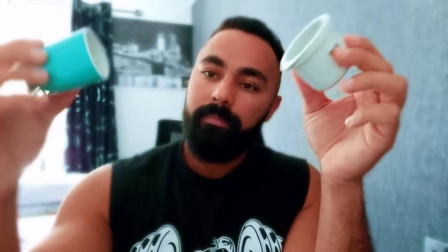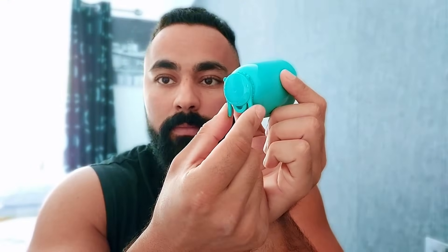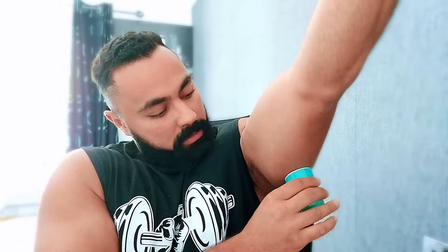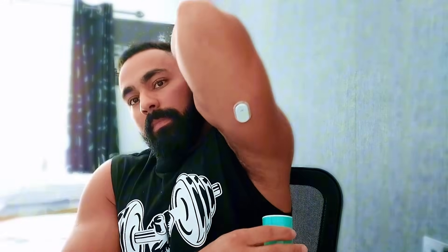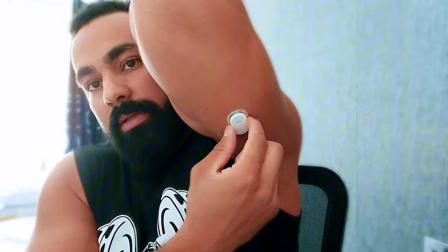Now I'm going to pull it out, and you can see the sensor here. Trust me, it looks bigger than what it is, but you're going to see the actual size. I'm wearing a different type intentionally on my right arm to show you the difference in size. So this is like a safety clip — you have to take this off. Then it's show time. Find the area — I'm going to put it on my left underarm. Then you just push hard on that button, which protrudes the sensor. That's it, it's in. And this is how it looks — this is how small the sensor is. It's pretty sturdy as well.